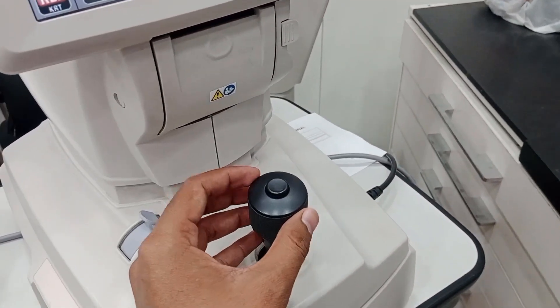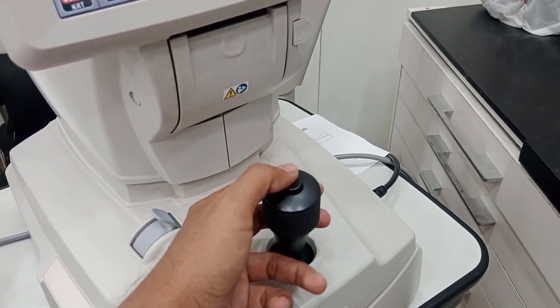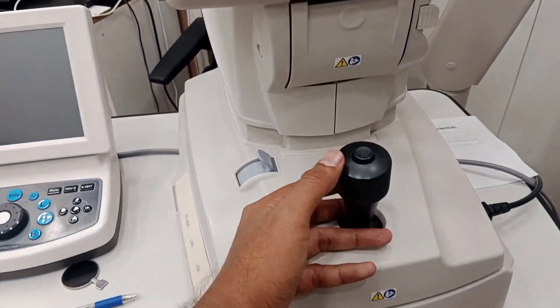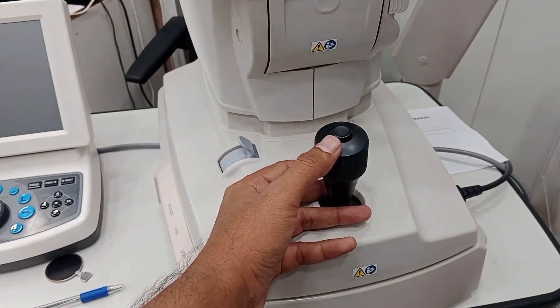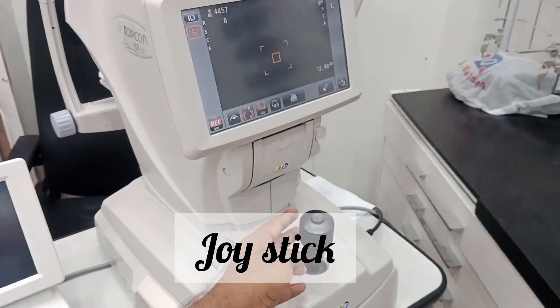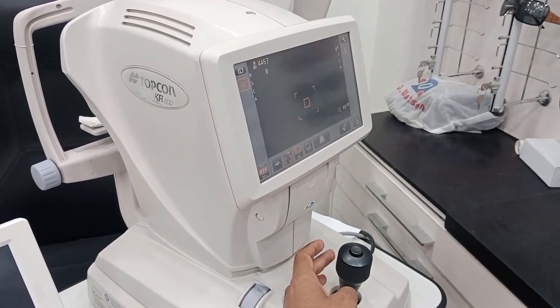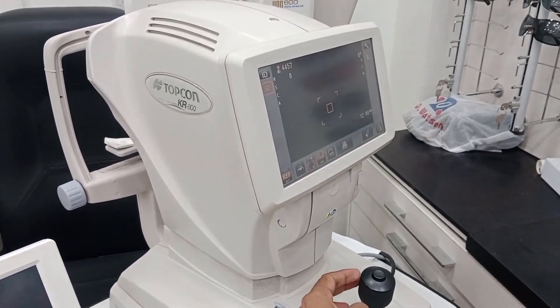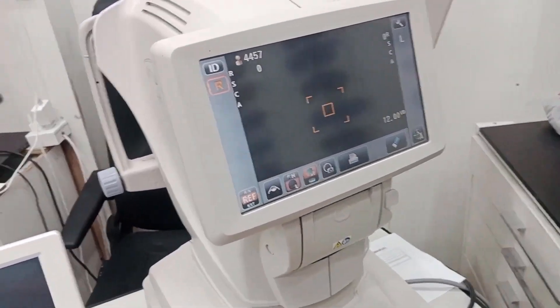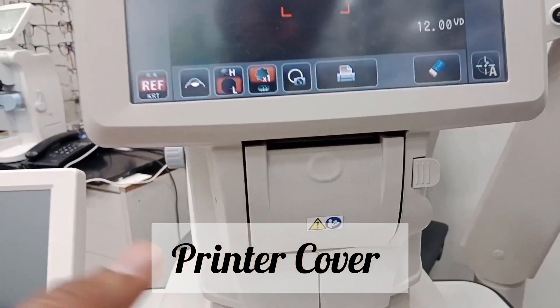This button is called the measurement switch. Press it to take different readings of the patient's refractive error. This rotating knob is called the joystick — moving it shifts the whole body up and down. This cover is called the printer cover.